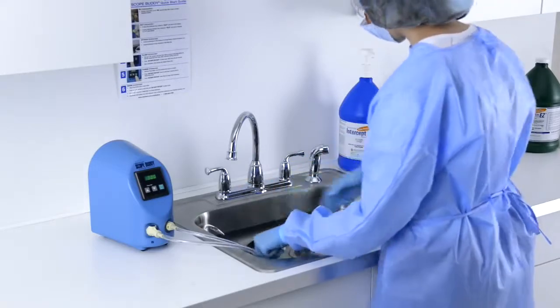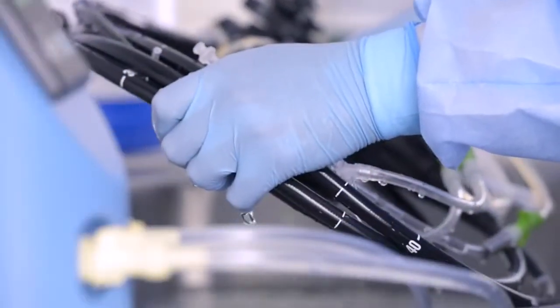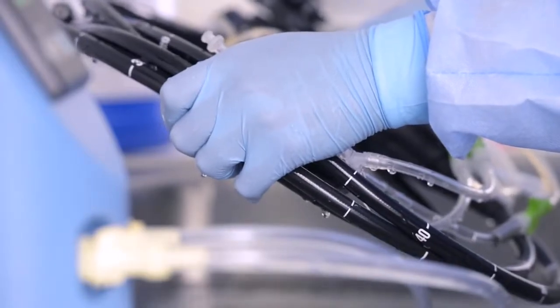ScopeBuddy is able to flush multiple endoscope channels simultaneously, shortening the time spent manually cleaning your endoscopes.